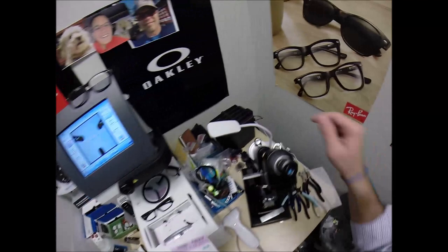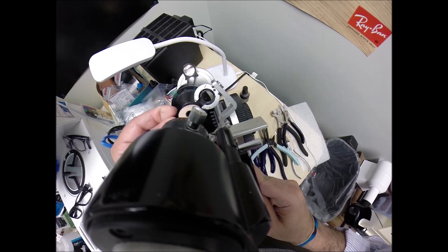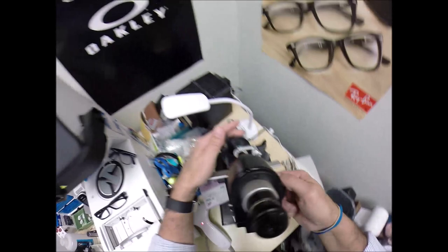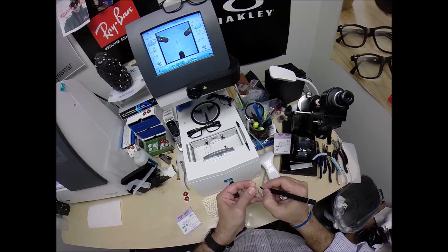And so these are your lenses. Your right eye is plus 75 minus 50 at 82, plus 75 minus 50 at 82. I didn't have to go far for that. Pull the lens out of the protective sleeve, put it in. Let's put the power in there plus 75. Rotate until the spherical component comes into view, raise it up to find the center of the lens, check your astigmatism correction of which you barely have any, put three dots on your lenses.